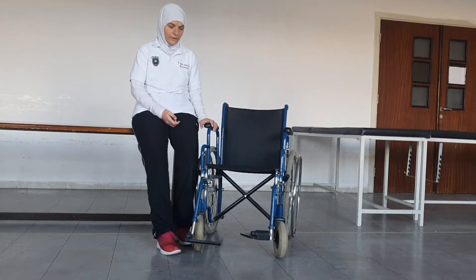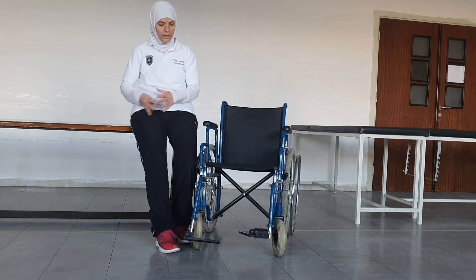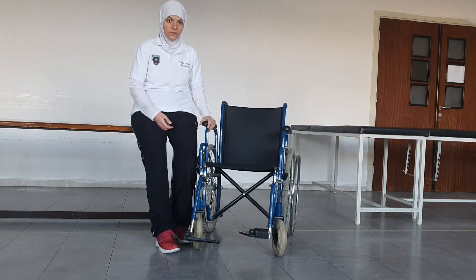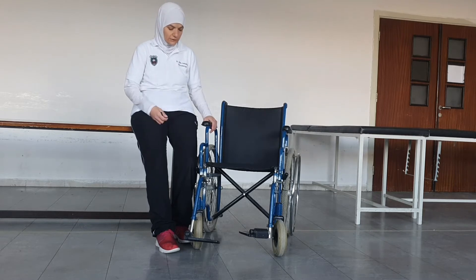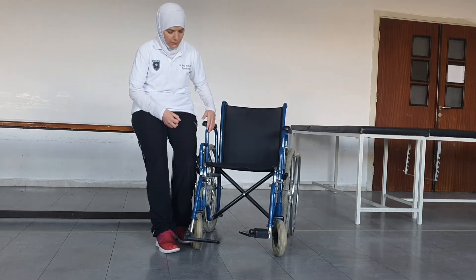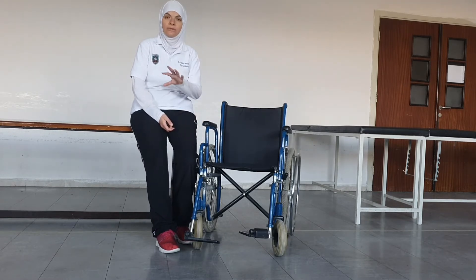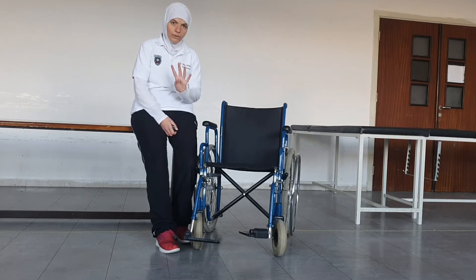When prescribing a wheelchair to a patient, there are important dimensions we need to take on the patient and the chair, and find the best fit between the two. Most patients will use custom-made wheelchairs, so we can adjust dimensions. Even for standard wheelchairs, certain things can be adjusted — like angles, width, or distance from the wheel. I will briefly mention the four basic measurements we do on the patient.